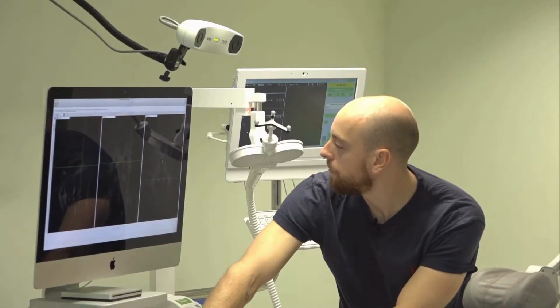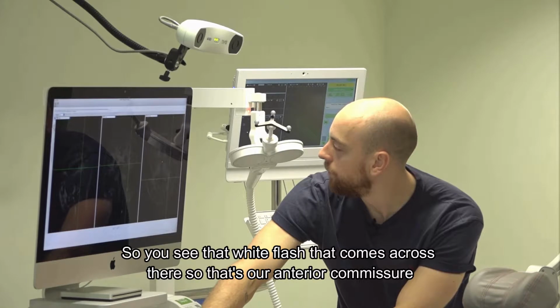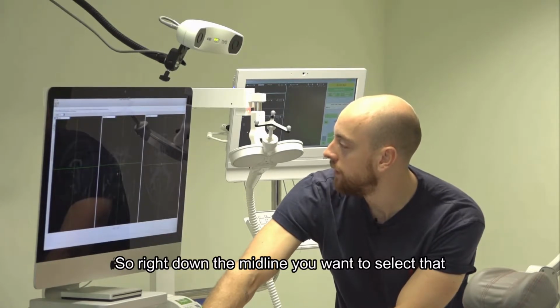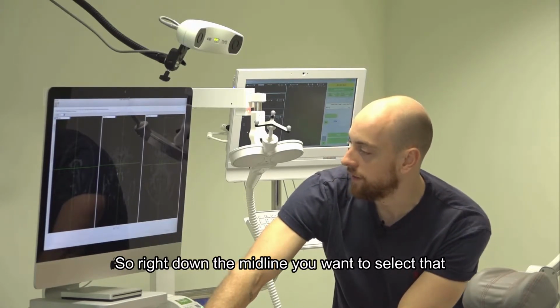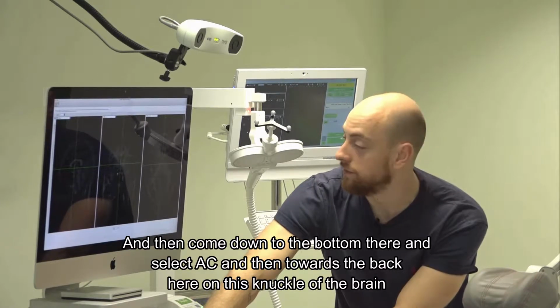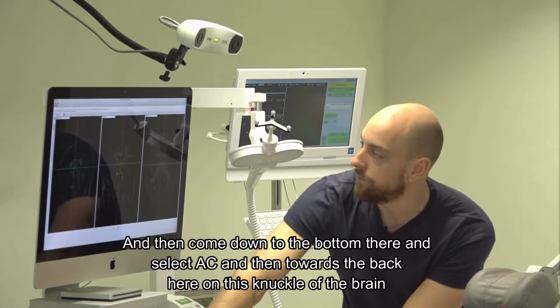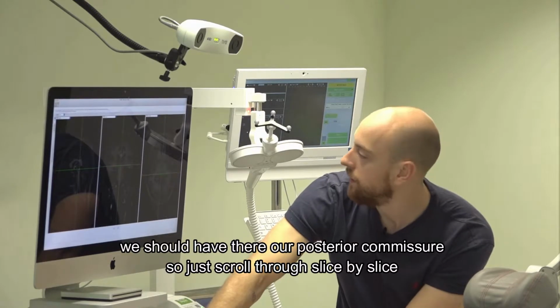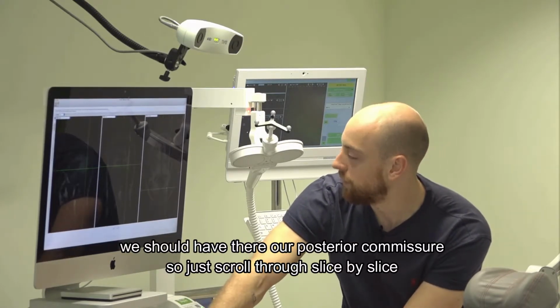So you see that white flash that comes across there. That's our anterior commissure. Right down the midline, you want to select that, then come down to the bottom and select AC. And then towards the back, on this knuckle of the brain, we should have our posterior commissure.